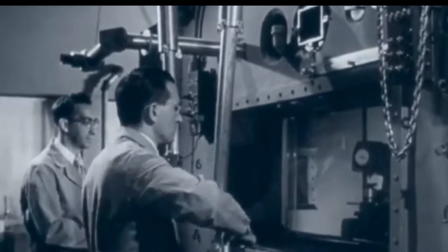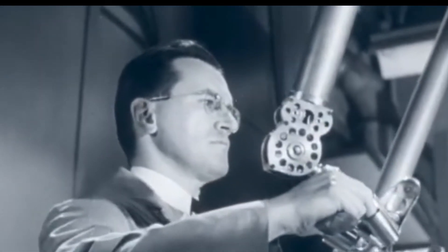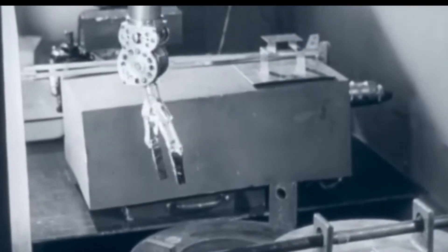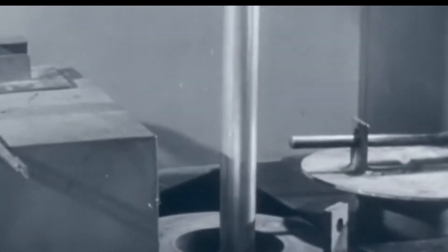In the 1960s, Iridium-192 was the most commonly used source of brachytherapy. During this time period, remote after-loading devices were developed and improvements in imaging techniques and computer technology were adopted to brachytherapy. The evolution of brachytherapy has continued over the years but many of the techniques have remained unchanged.